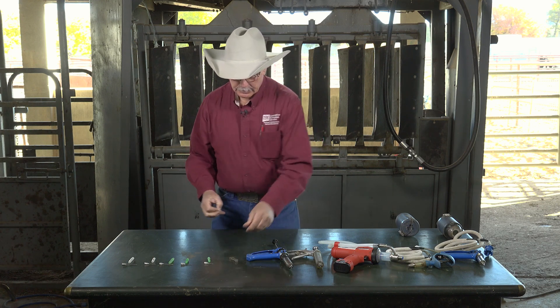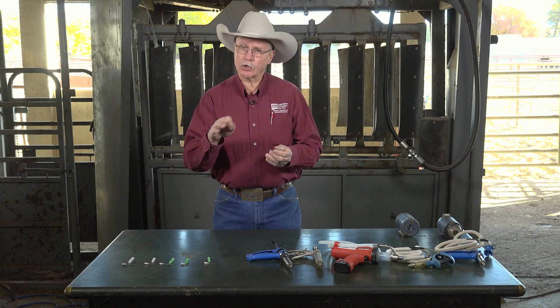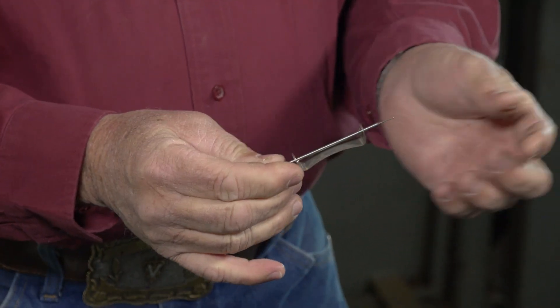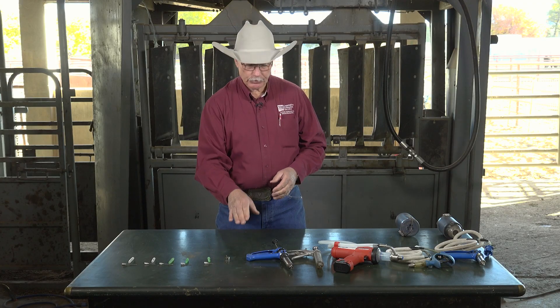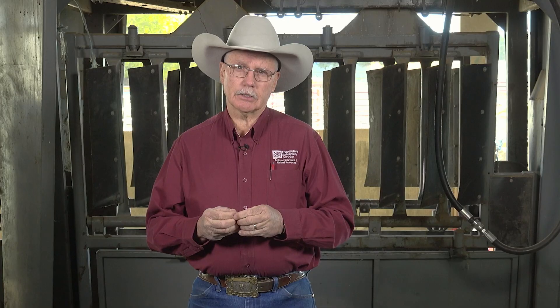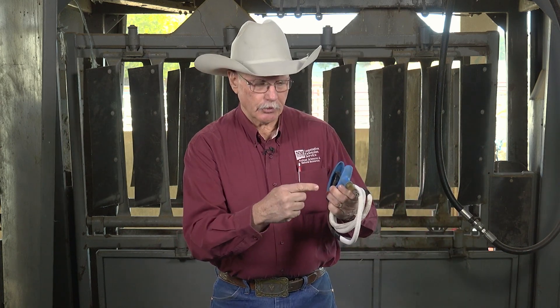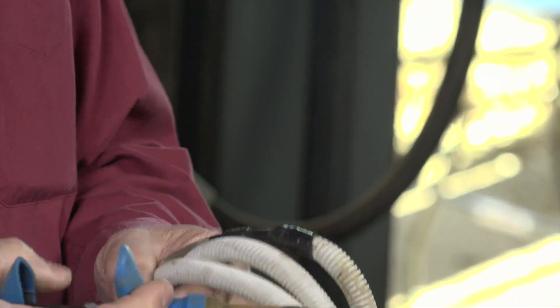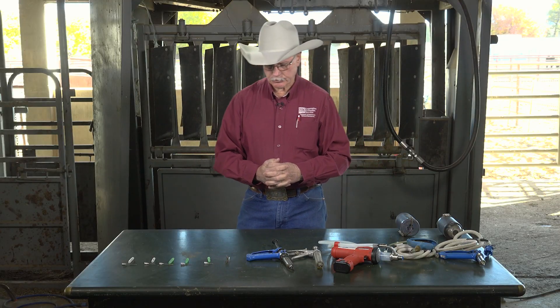I have a wire here because when you puncture that rubber stopper during transfer, a lot of times it will cut a core of that rubber. So I have this wire that goes through to make sure you knock out any rubber pieces left behind in the transfer needle, because if it does go into the system — say, into one of these syringes — that rubber plug can go through the line and will ruin the syringe, plug it up so it won't function anymore. So it's really important to always knock the rubber plugs out of those transfer needles.